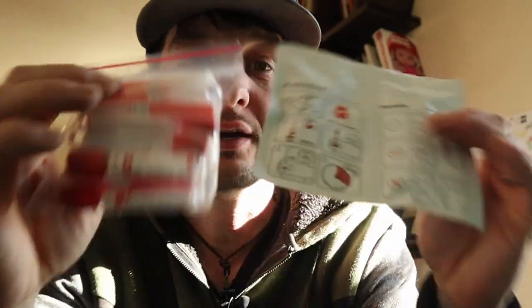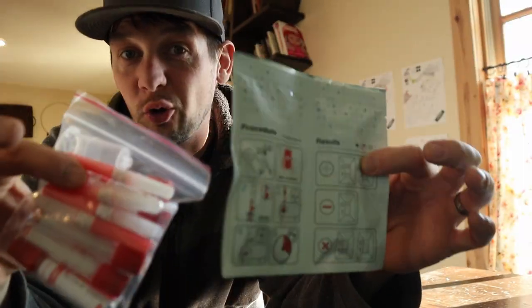I did a video quite a while back about the fastest way to see if your cow is pregnant. Well, that fastest way just got even faster. What I did before was draw a blood sample and take it to a local co-op where they would do the testing and tell me if my cow is pregnant. Well, this right here is so I can do it at home.